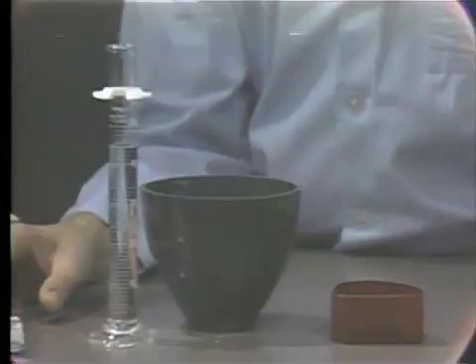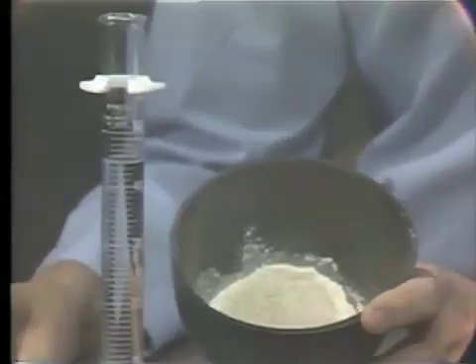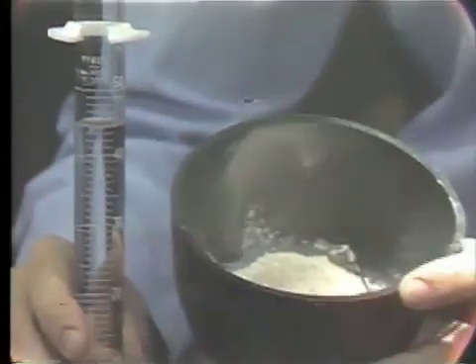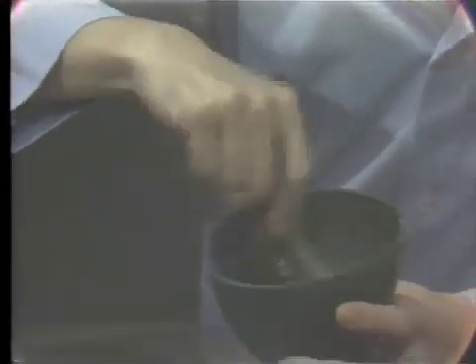For your impressions, a mixture of 150 grams of dental stone to 45 cc's of water will give you the proper water-to-powder ratio. You always mix these two to a nice smooth consistency and then vibrate them on the vibrator to eliminate any bubbles and air that may be trapped in the dental stone.